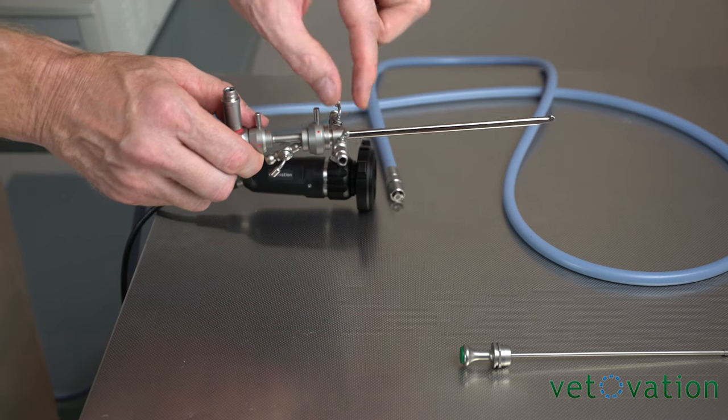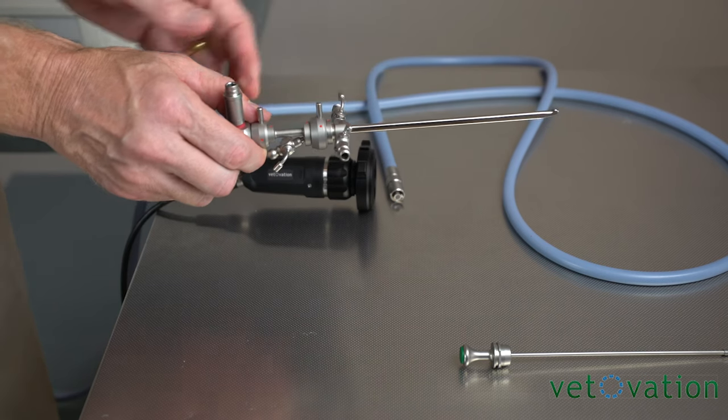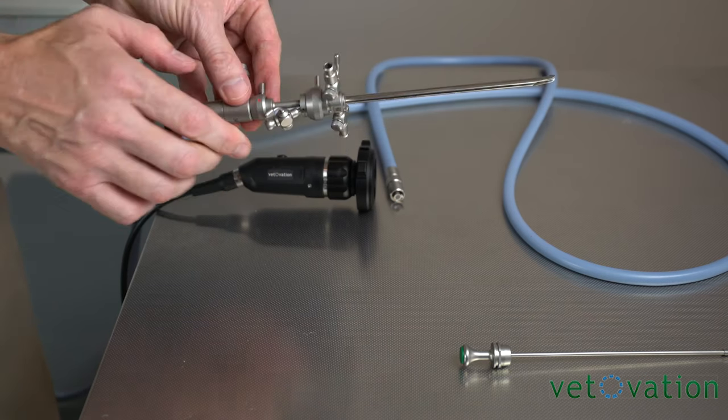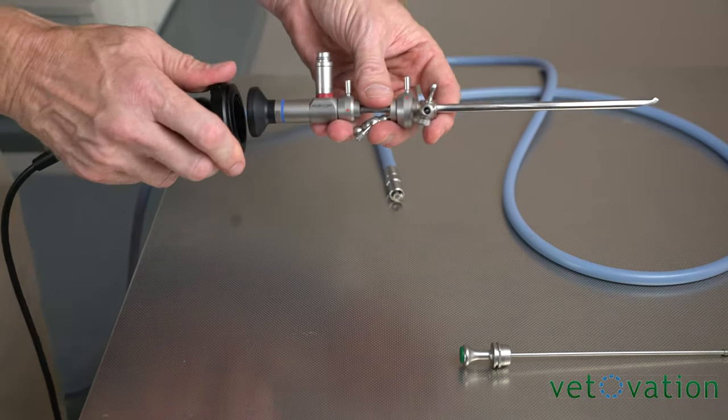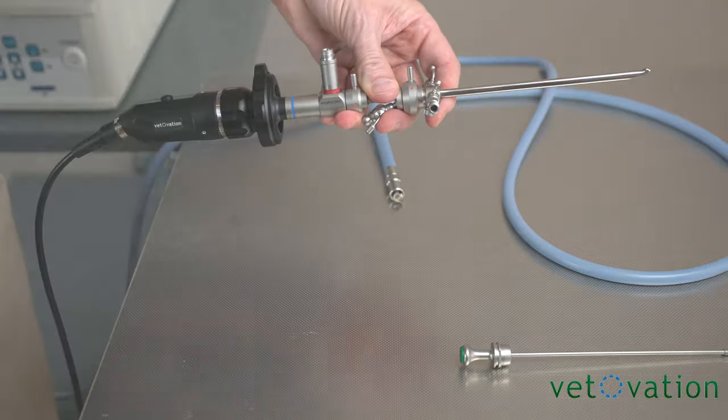You have two ports to be able to run fluids through and you have a working channel that your grasper can go through. This also hooks to your camera.